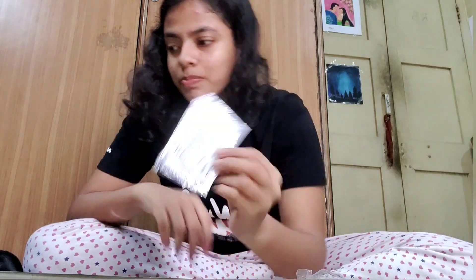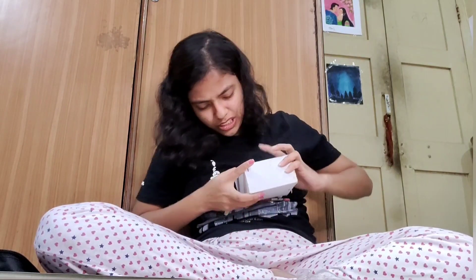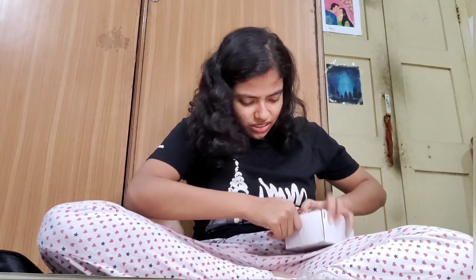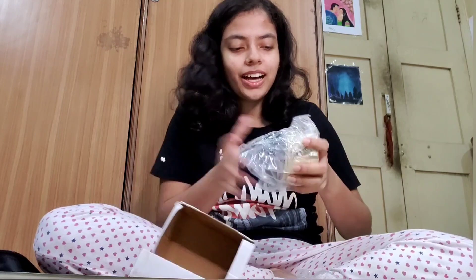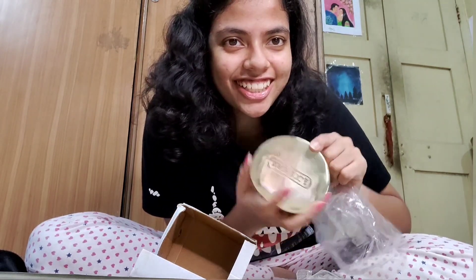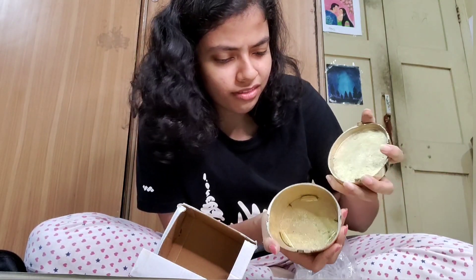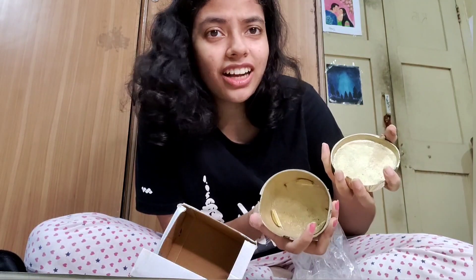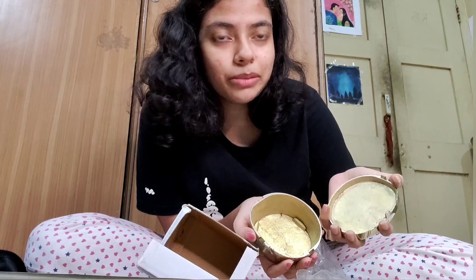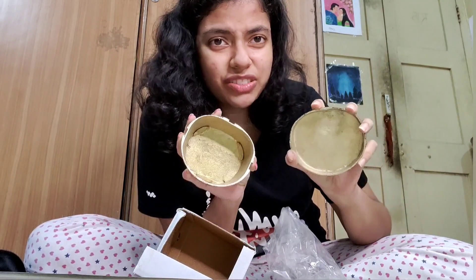Nylon amalgam squeezers — oh my god, this is heavy! Why is this so heavy? Don't tell me it's a mold, like a cast or something. It's golden and shining. Is it for keeping the cast that we make? Seniors, if you are watching this video, please let me know what this is. I don't think it's for keeping cast.